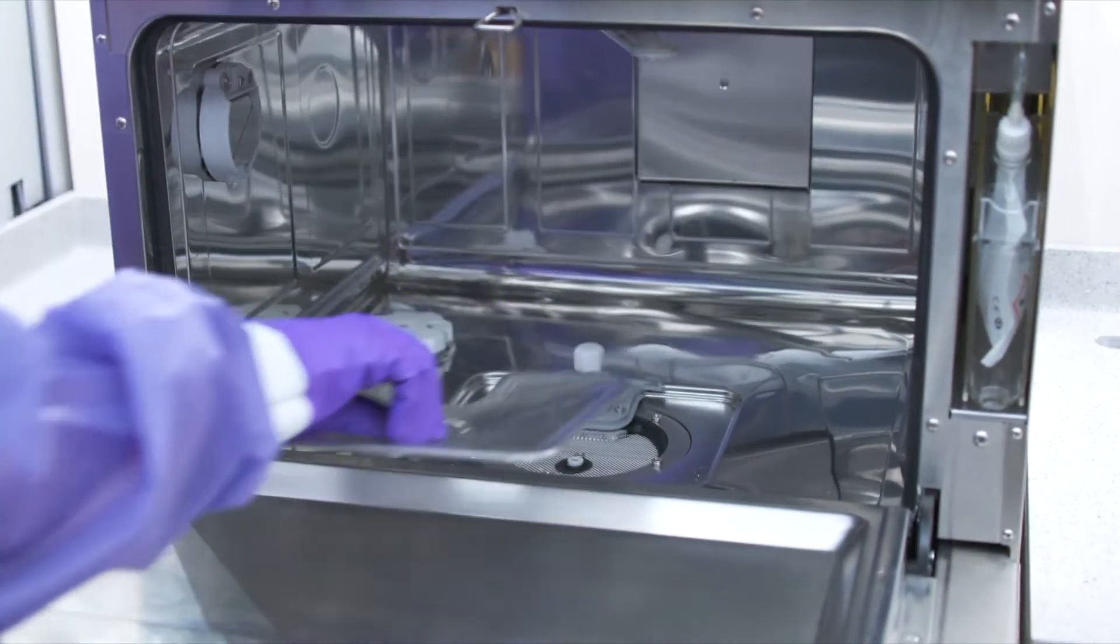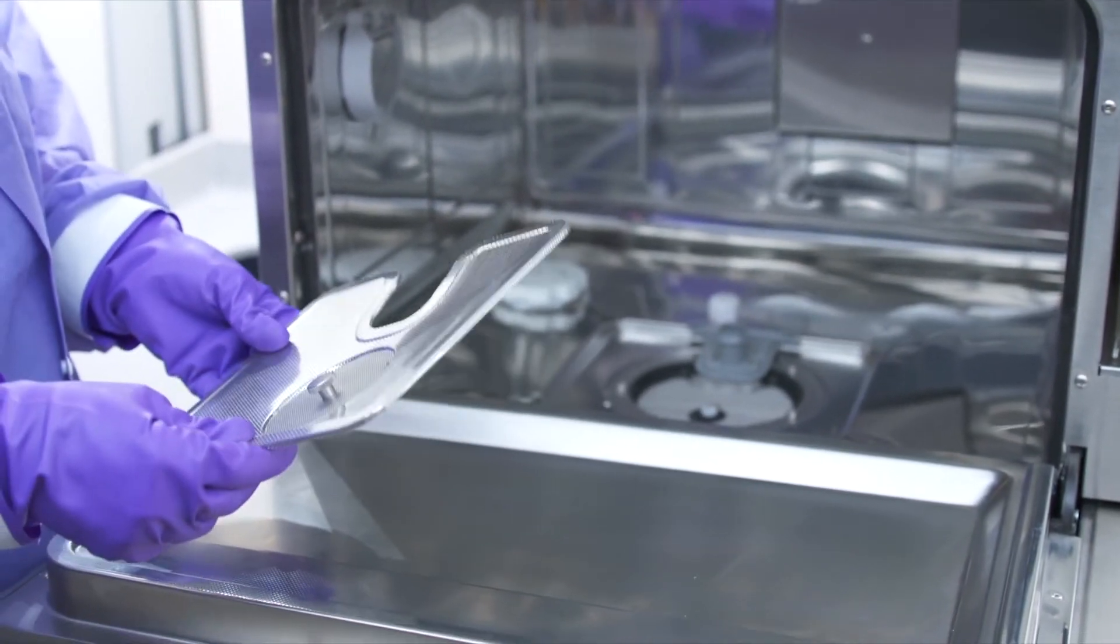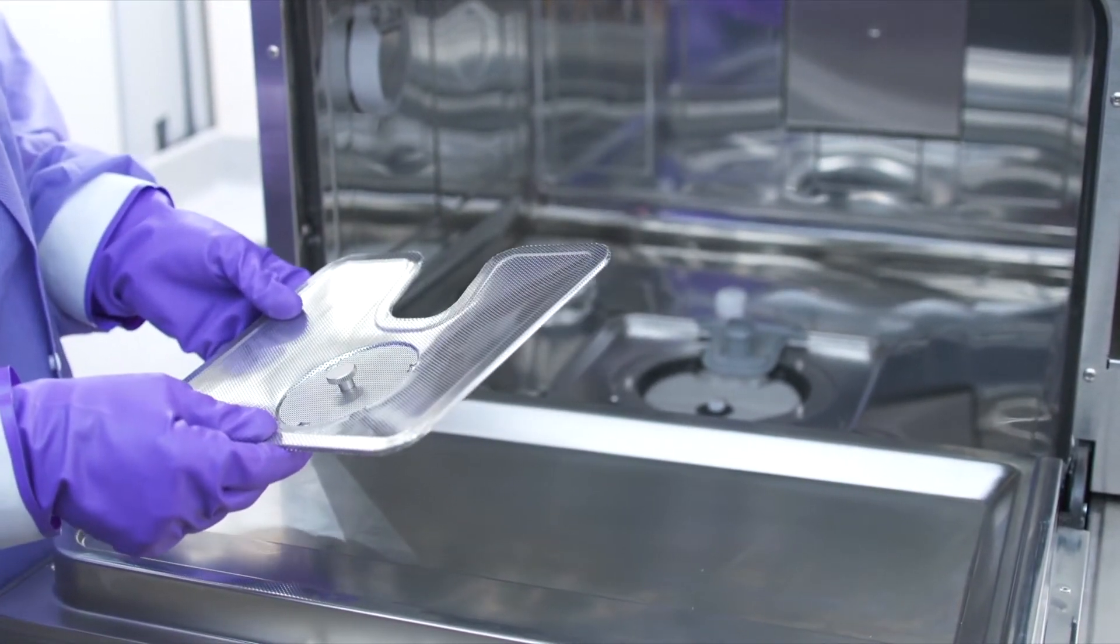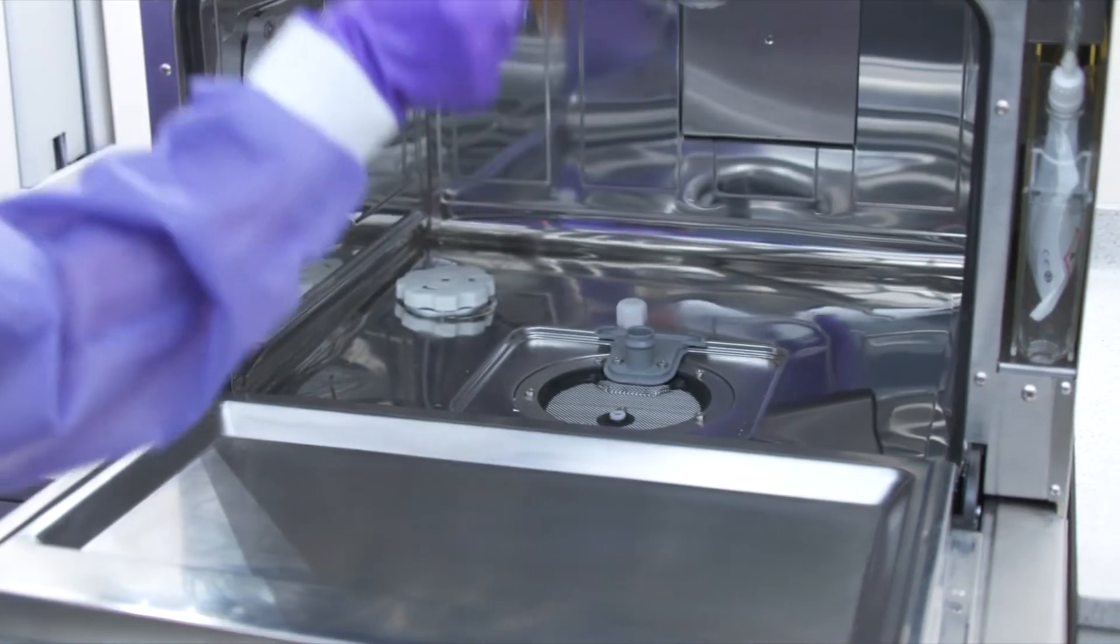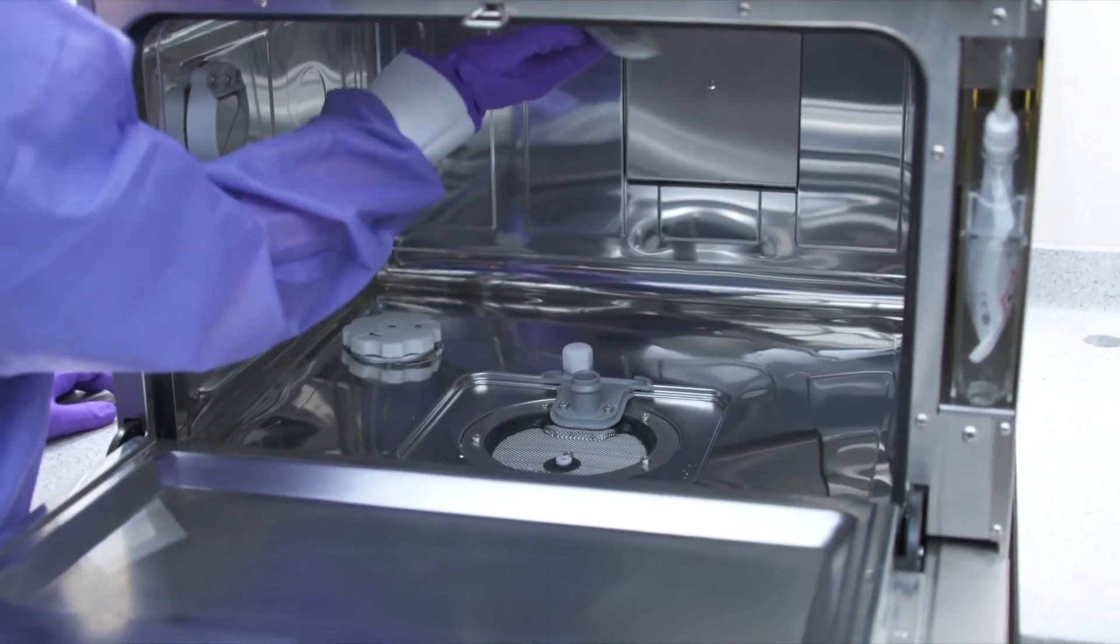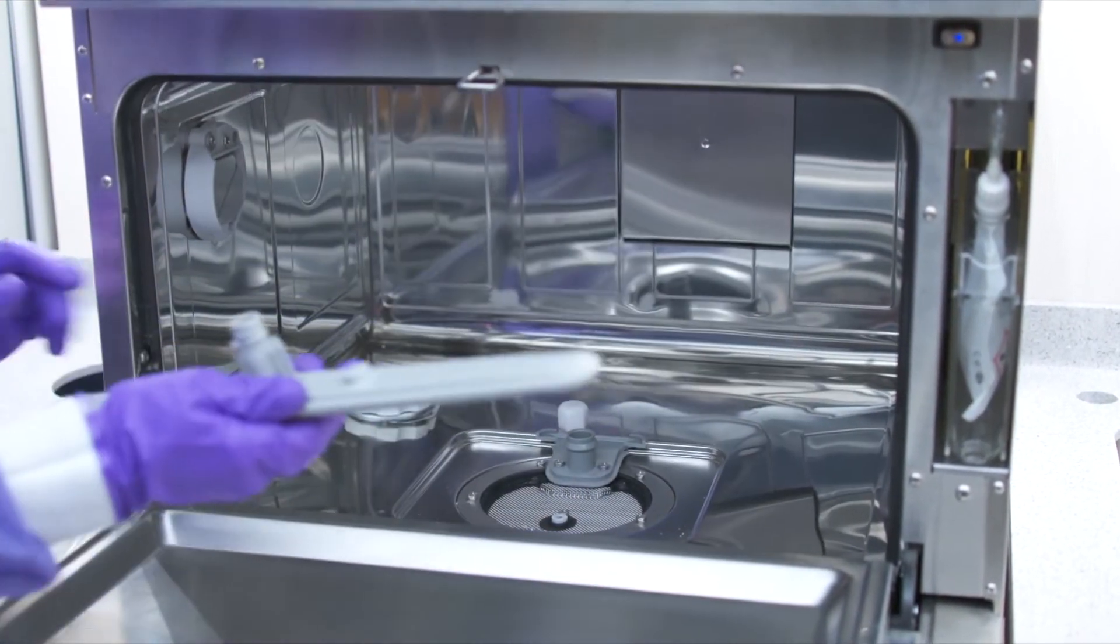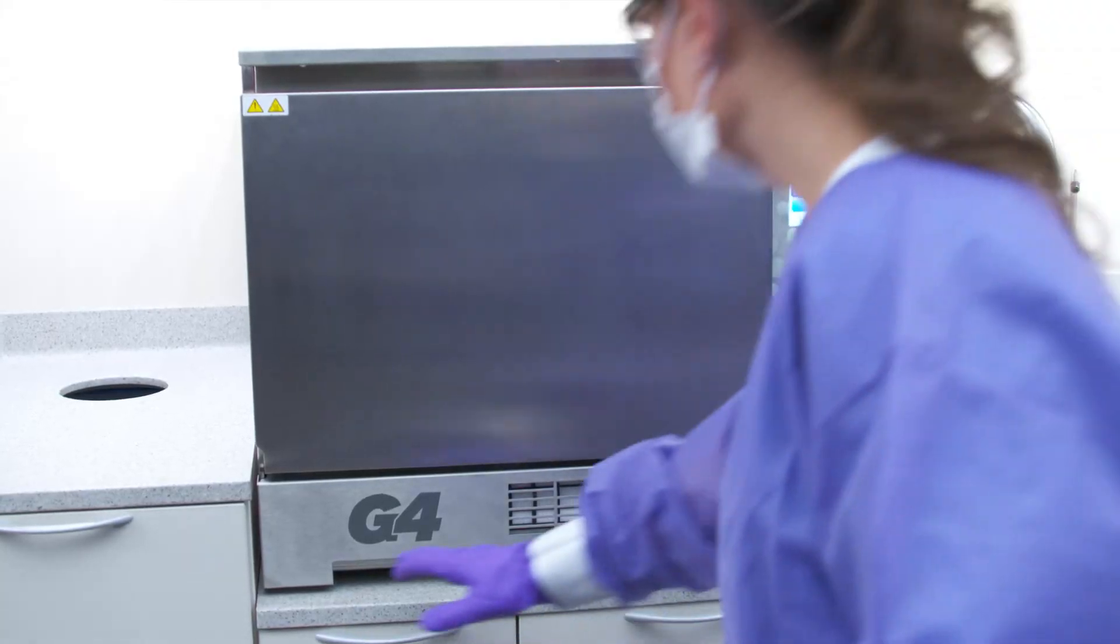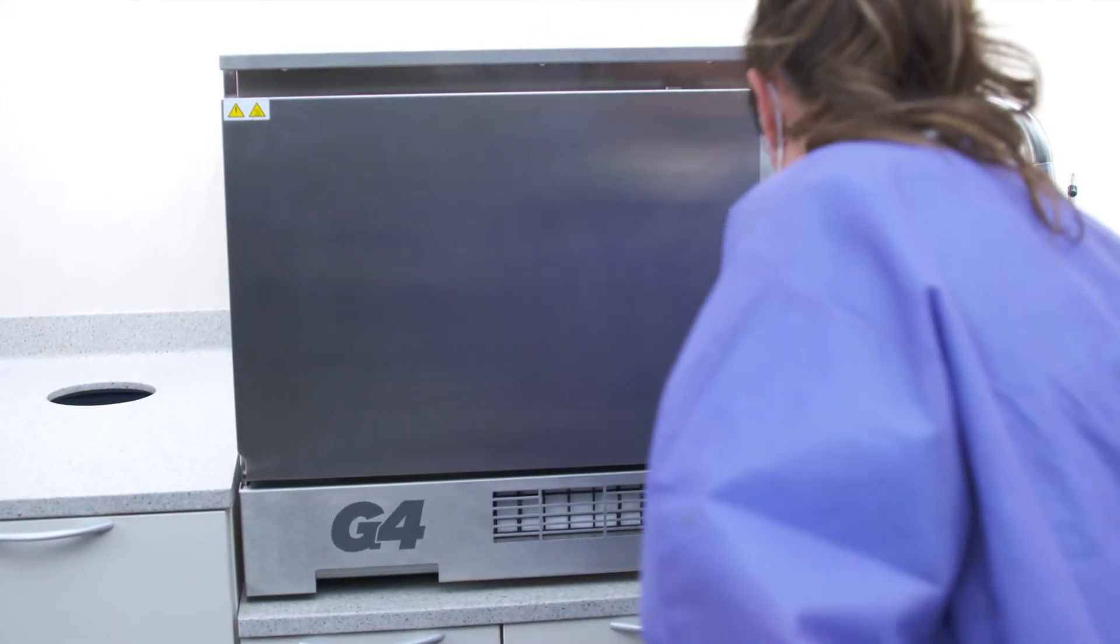Chamber's coarse filters should be removed, inspected, and cleaned. The two wash arms should be checked for debris and cleaned if necessary. Make sure there are no leaks around the unit.